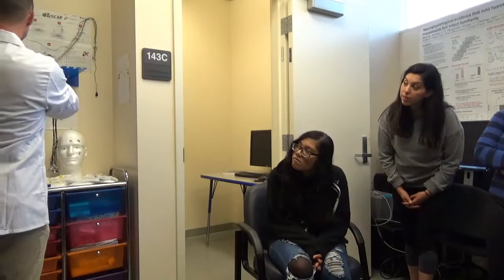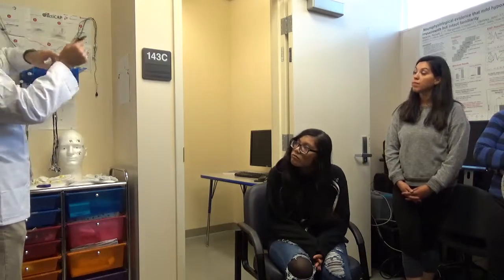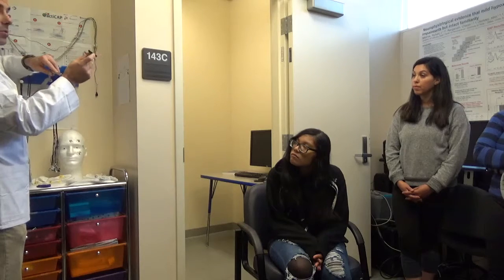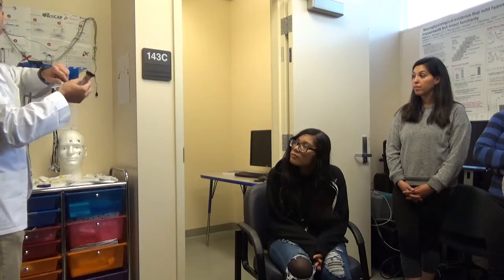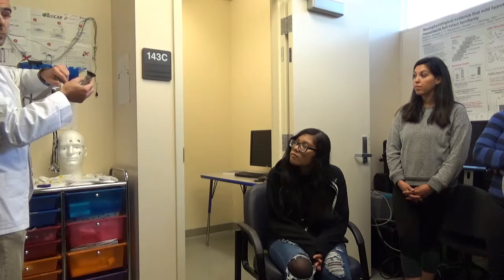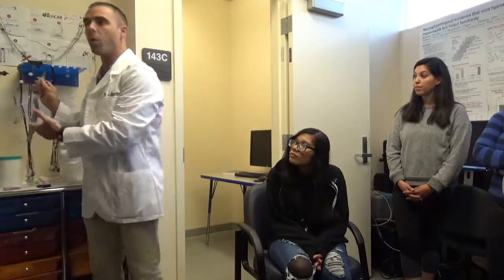Generally, the first thing to note is this end is a really important end of a fitting, okay? This is what connects to our computer, and it's a very sensitive, very expensive piece of equipment, okay? And it's really important that it doesn't get wet. Now, that might not matter right now because there's no water around here, but when we clean it later, it will be exposed to water, and we never want to get this side wet.